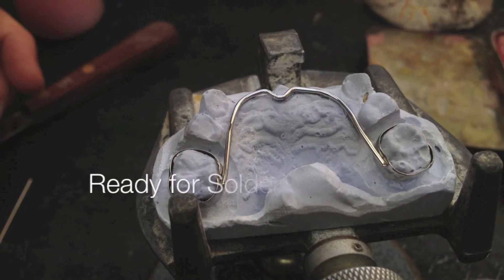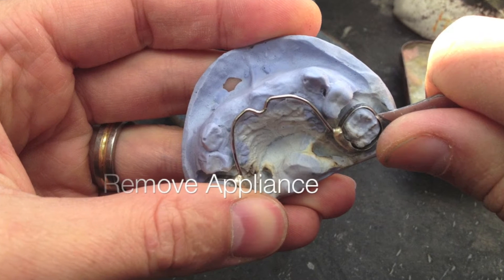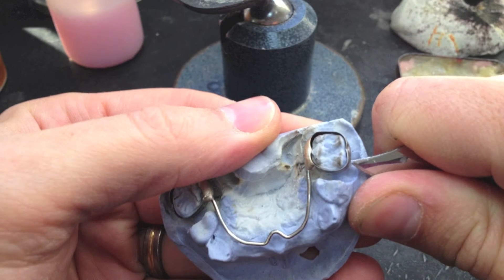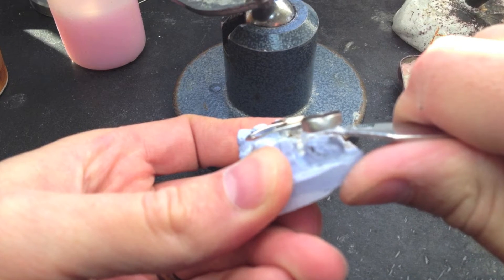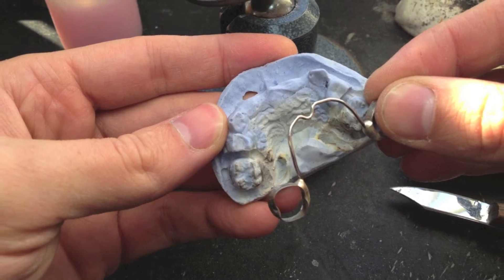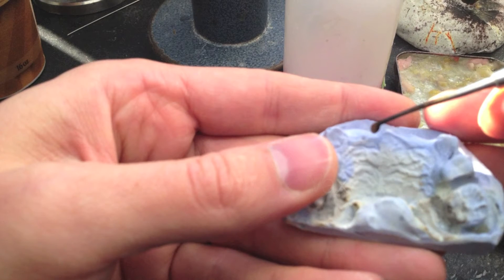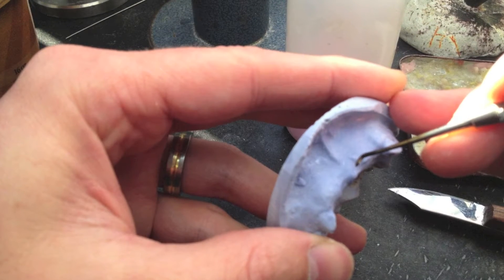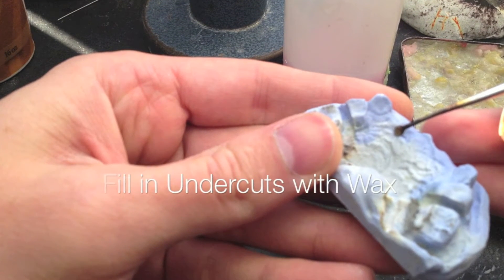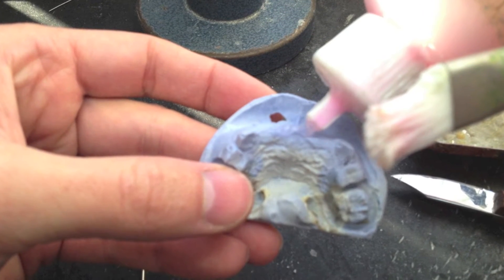When you're ready, you're going to have to solder this like any other appliance. When you remove it, just be careful that you don't destroy the bands or the teeth. If the bands were embedded in the impression as it was poured up, it's better to just break off those teeth. Then you can super glue or sticky wax them back down when you're ready to apply the acrylic. It's good to be able to remove this so you can fill in voids, put separator on, and get it ready for acrylic, then put the wires back down. It also helps to prep the wires if you have soldered those spikes on there before the acrylic goes on.